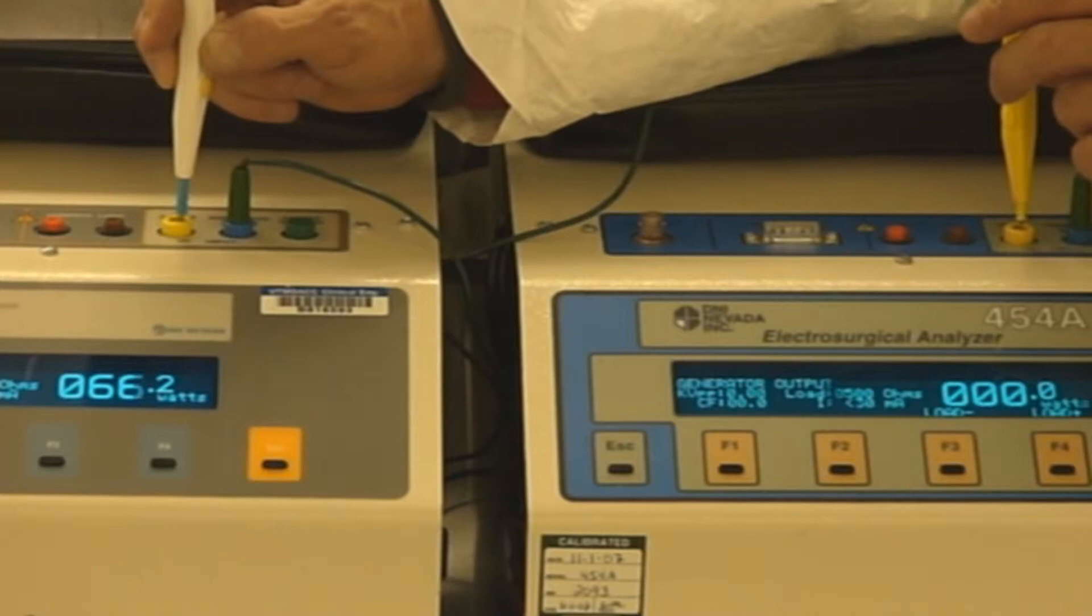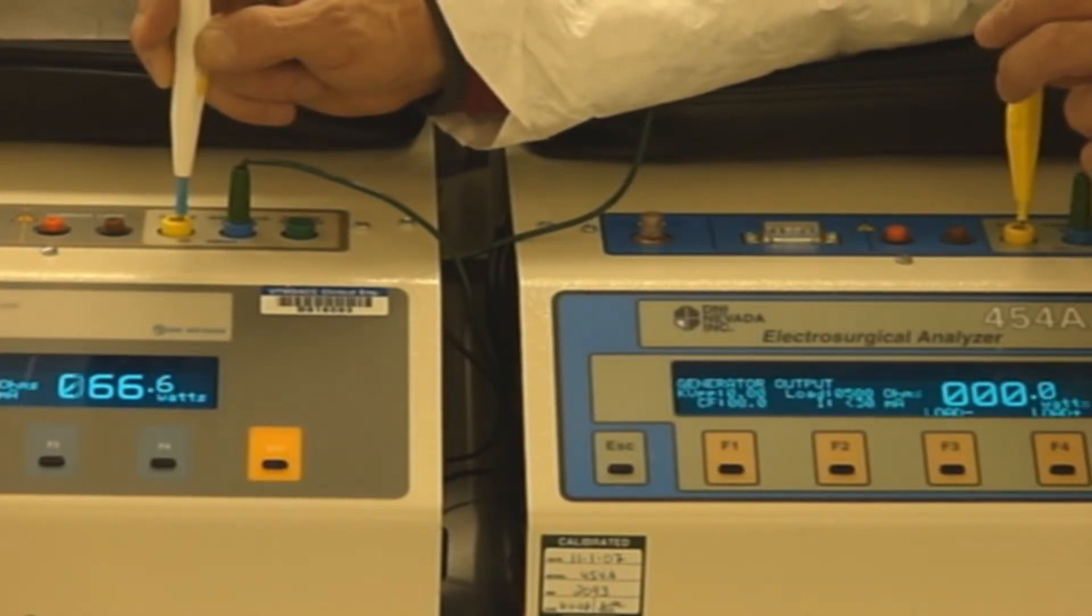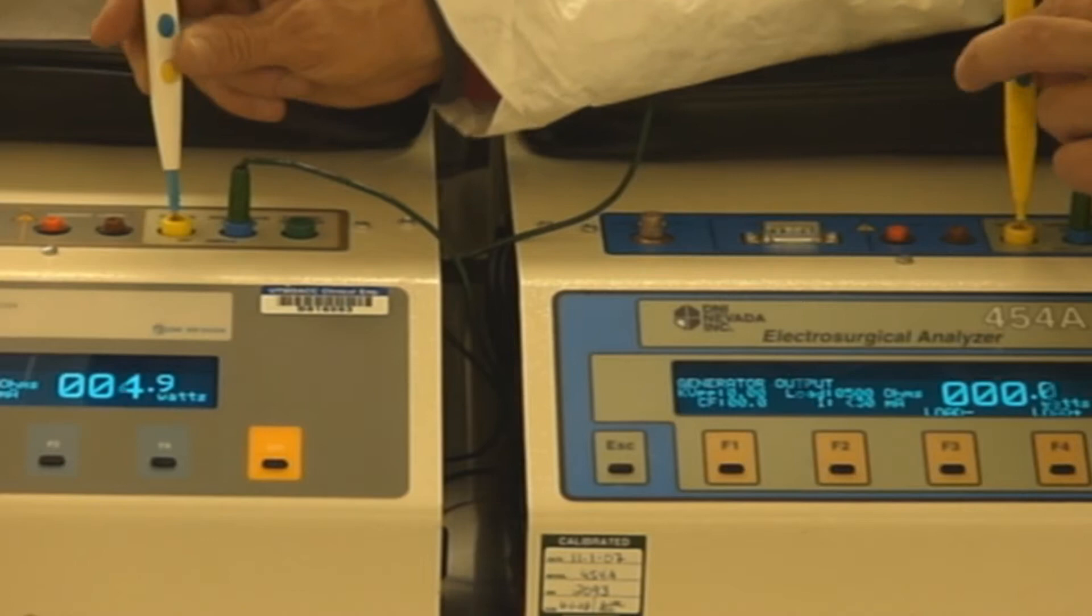We're seeing a little bit more variance here as we get to the lower effects. As you'll see after the shift, we're down to about 66 watts. There's the split. There you have it.